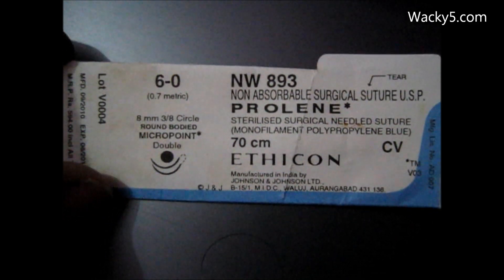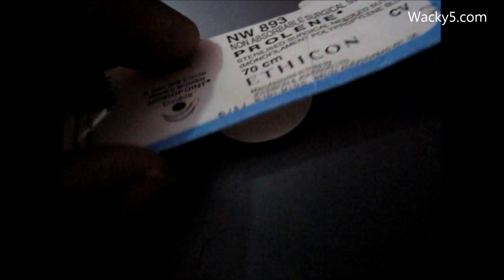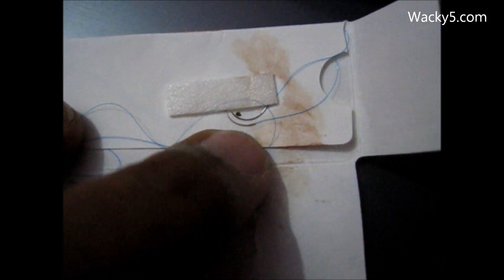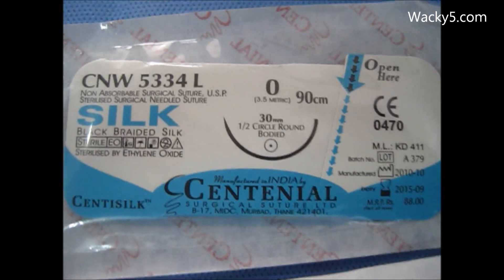Friends, suture materials are of many types, like absorbable and non-absorbable. Absorbable sutures are further divided into plain catgut, chromic catgut, PDS, and Vicryl. Non-absorbable sutures may be of prolene, cotton, silk, etc.